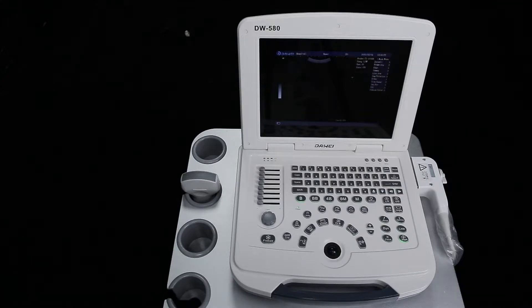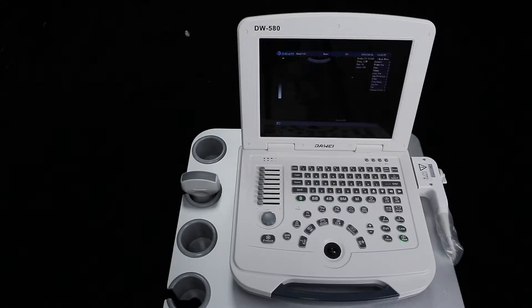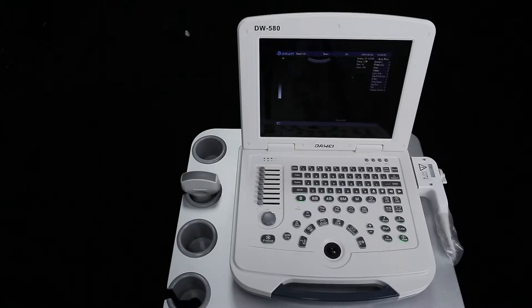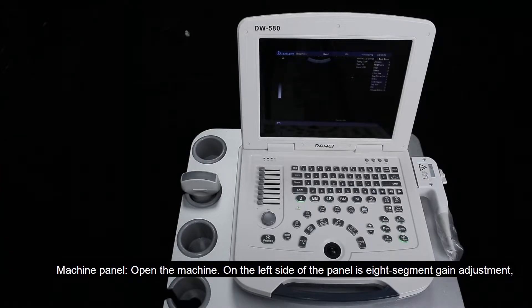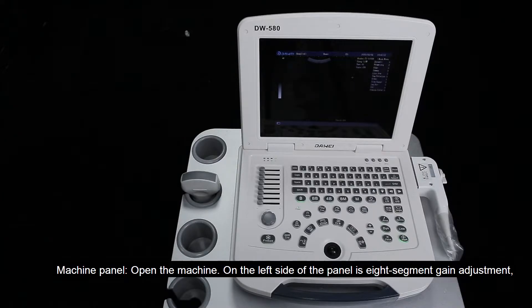Introduction to the Machine Case Machine Panel. Open the machine.